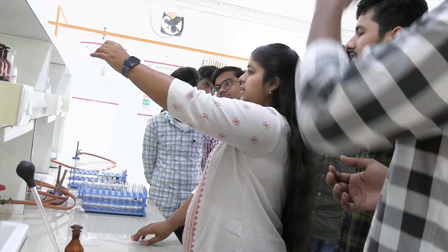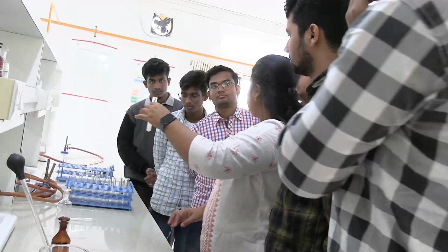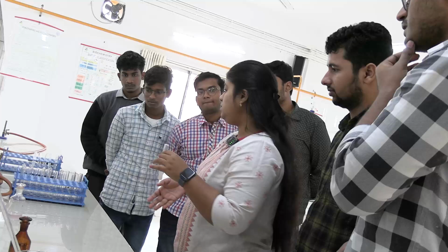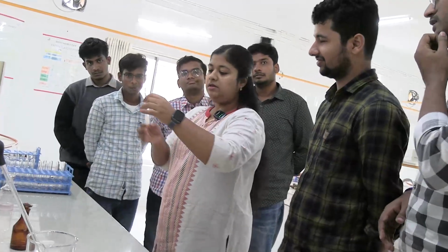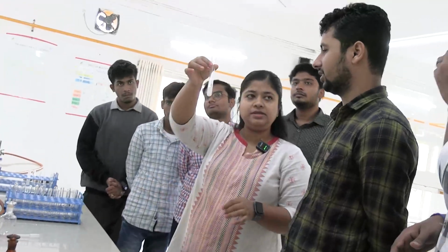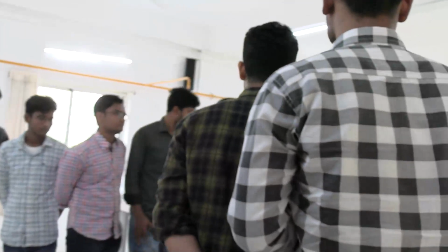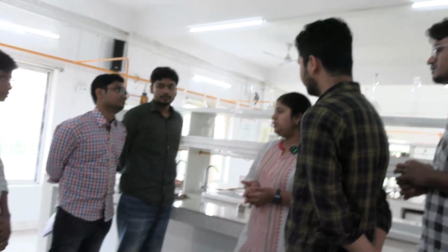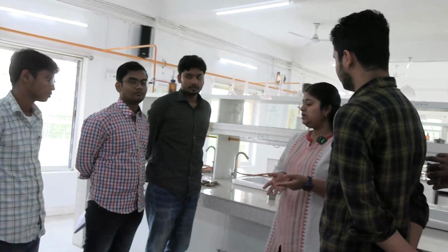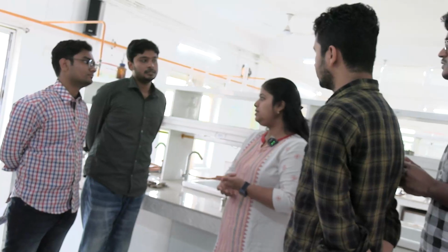Okay, cloudiness. So what is the principle behind the sulfosalicylic acid test or heat acetic acid test? I told you. What is the principle? Has everyone seen the cloudiness? Clear? Denaturation of protein. Principle is denaturation of protein. Okay, so denaturation can be done by heat or acids. So sulfosalicylic acid is one of the denaturing agents, and glacial acetic acid is another. Heat is a denaturing agent.